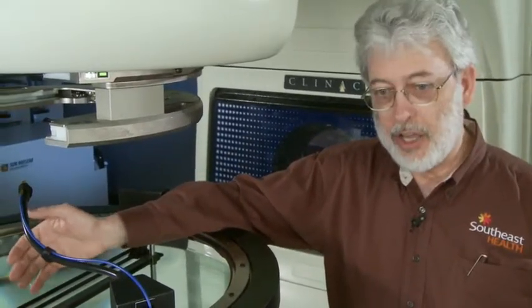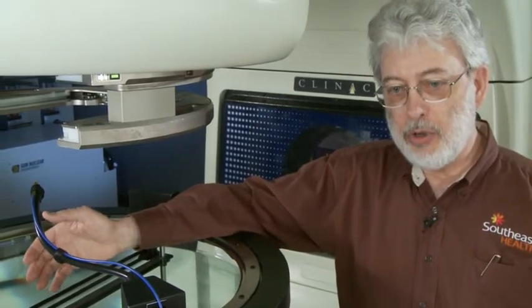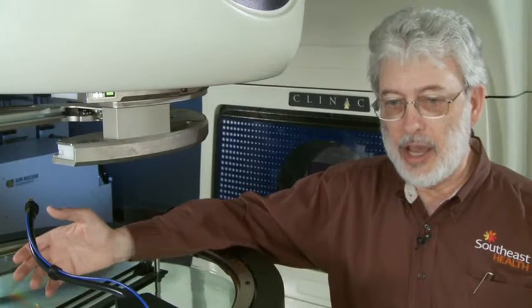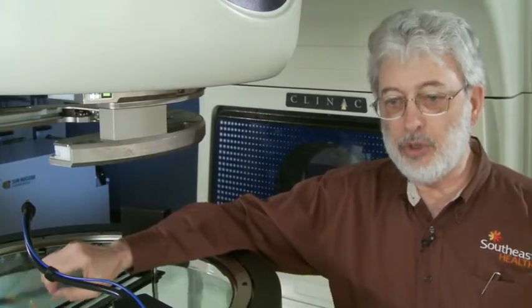The ability to do this very precise alignment using the remote control of the base is a huge time saver for scanning stereotactic beams. I'll measure a beam profile with 0.1 millimeter spacing and find the offset and from the computer control shift the base by that amount and then it's aligned within 0.2 millimeters.